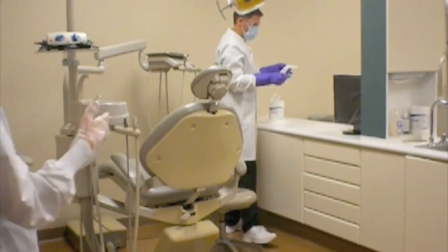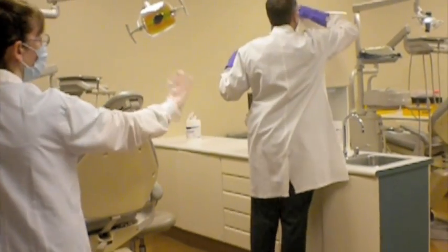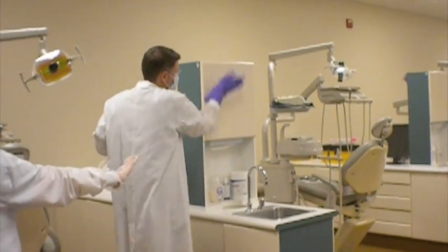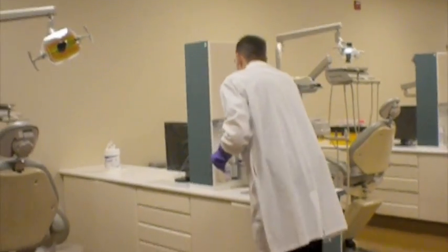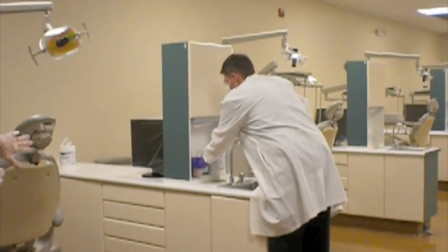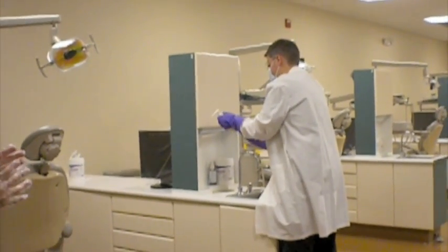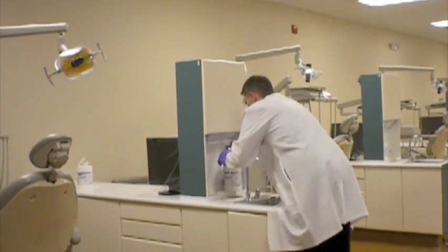So when you stand before your unit, you own everything to the right. So on this unit, the sink that he would be using is the sink to the right, and it's the only one that's at this unit because it's an N unit. So he's starting at the top, pushing everything away, coming down over the front, and now he's going to go inside of the front area here, wiping the cabinetry itself as well as anything that is sitting there before he puts it back down.